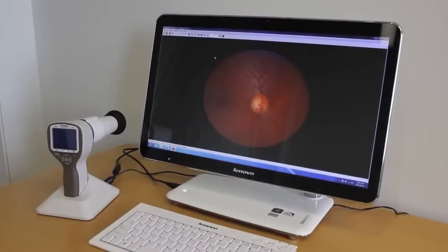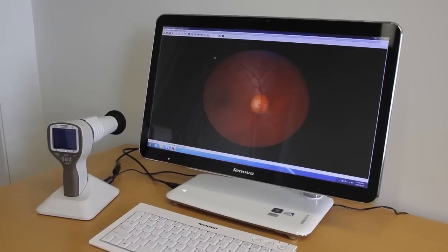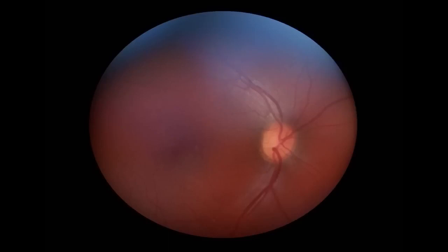Finally, let's go through some common mistakes with the help of some sample images. If you are seeing some white light on the top of the image, you will probably need to push the device slightly closer to the patient's eye. This will help prevent light from entering the silicone eye cup.